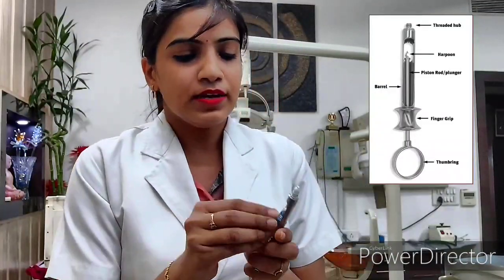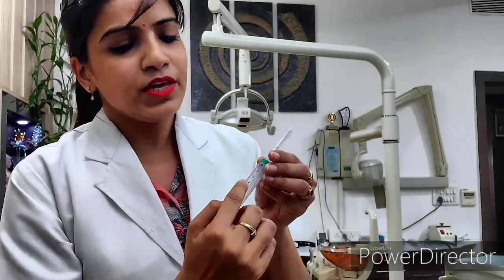So I hope you will understand the needle parts. You can assemble it in this way — our needle is ready, and this is your protective cap. So we use syringe to administer medicines — you have to do intravenous therapy, give an IM injection, withdraw fluids from the body, or take a blood test. So we use syringe in these conditions. And after using the syringe, we discard the needle so that cross-contamination does not happen. These markings show us the quantity — how much fluid or medicine we have to fill.